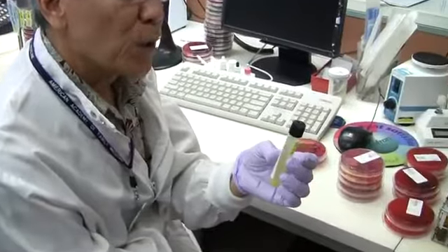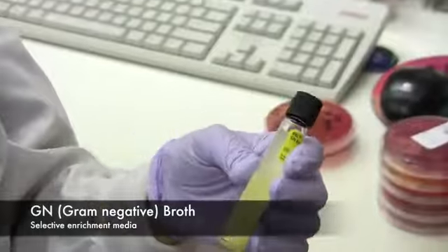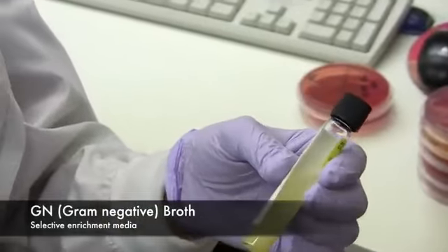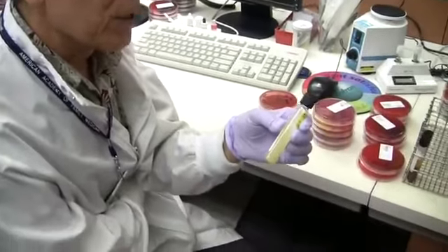Together with the stool culture, we're also inoculating the stool in what we call GN broth. GN broth is an enrichment and a selective medium at the same time. After inoculating this, we incubate it in the incubator at 35 to 37 degrees.